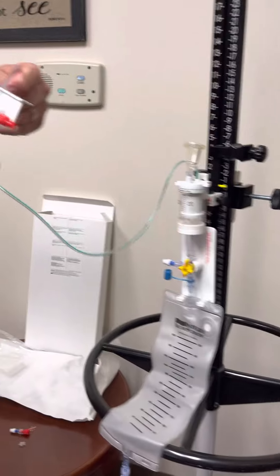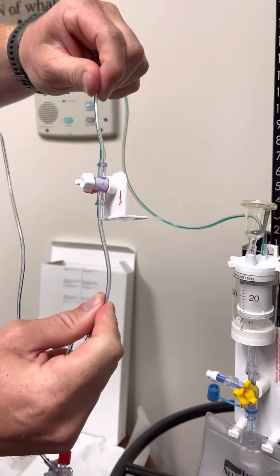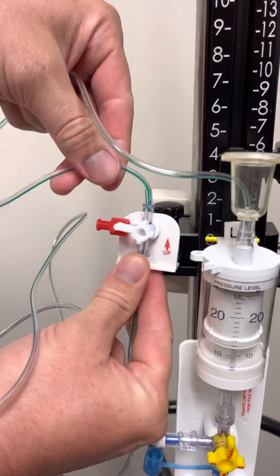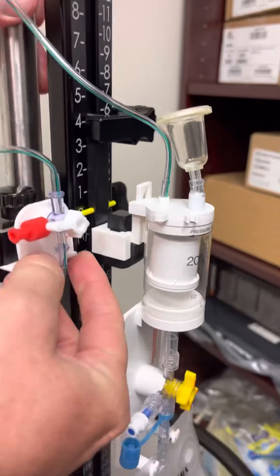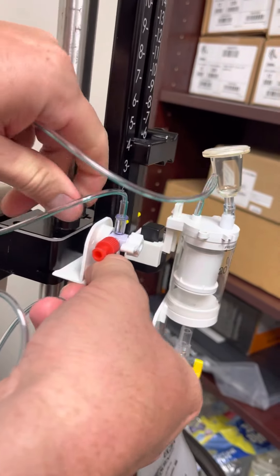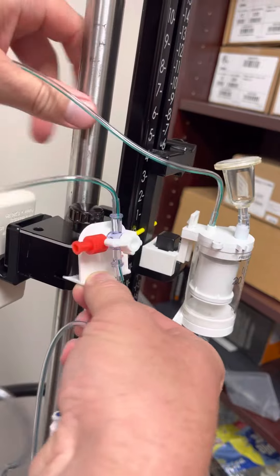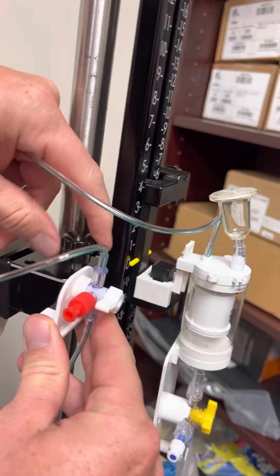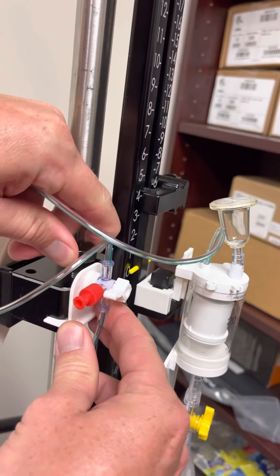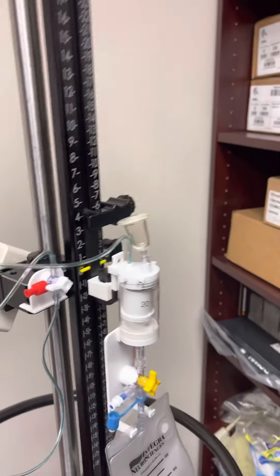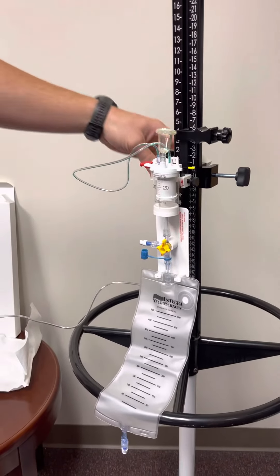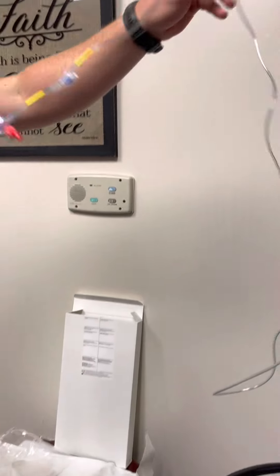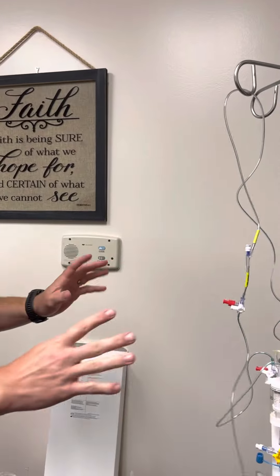Your second cassette, also labeled up. So we're putting it in the correct location and securing it in place to make you more hands-free.